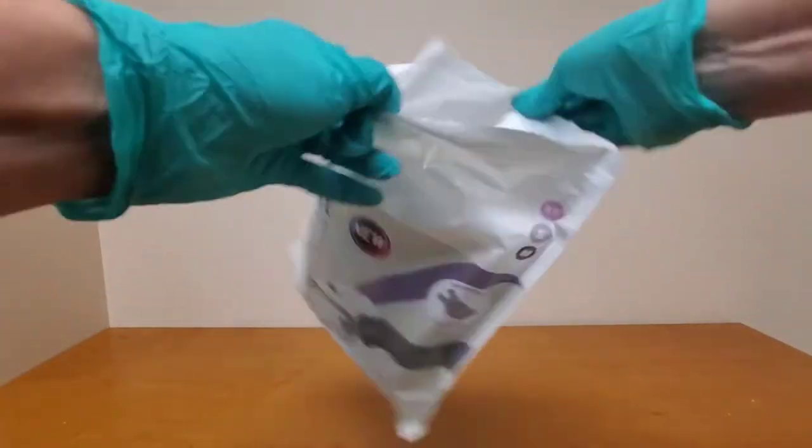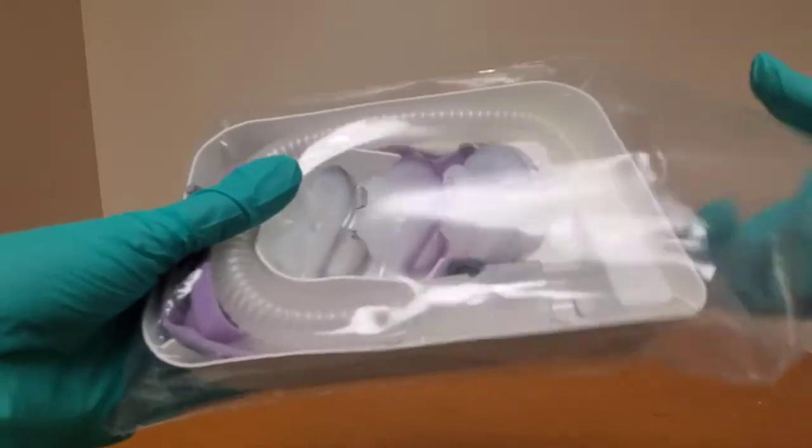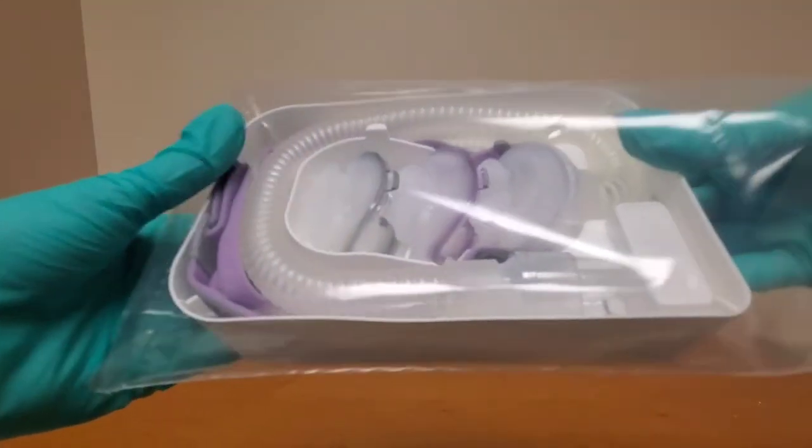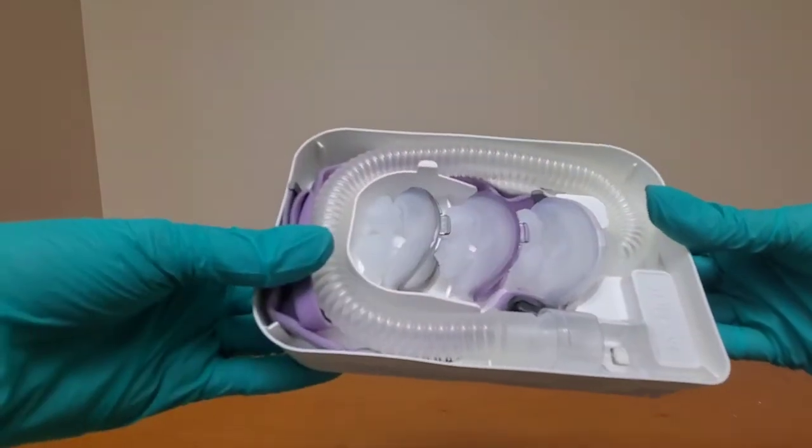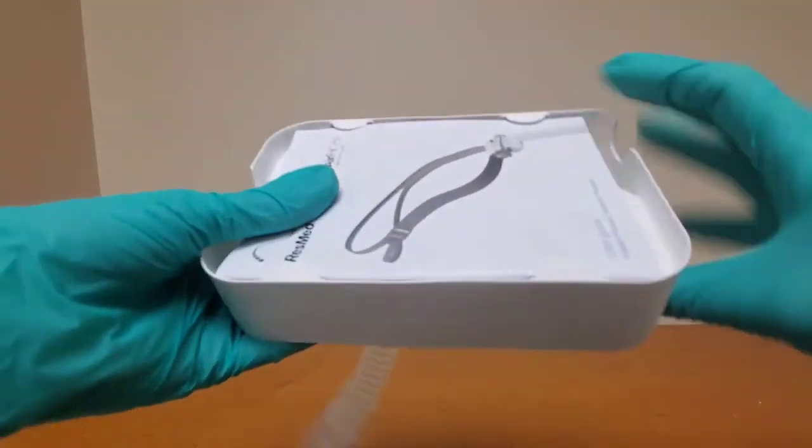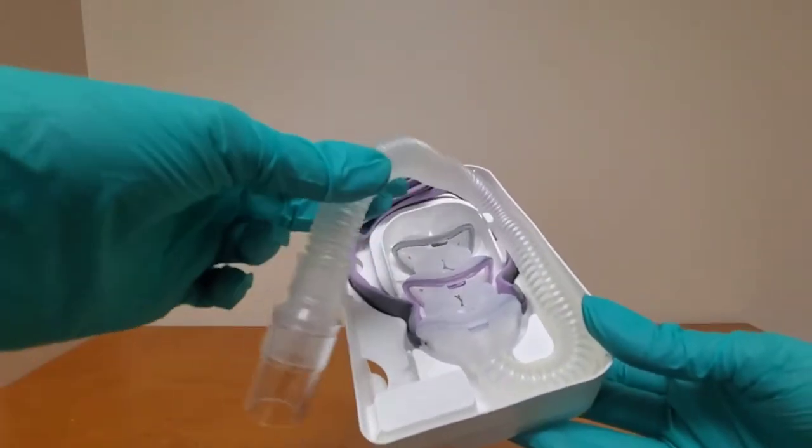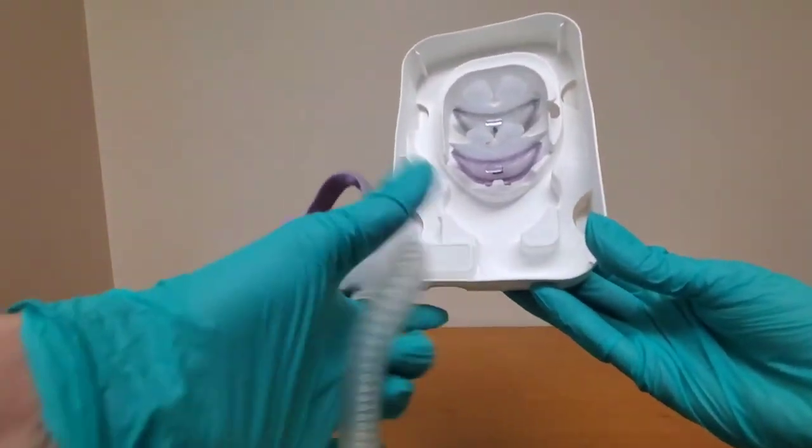This fantastically quiet nasal pillow mask is super flat which is wonderful if you're sleeping on your side, you can't even hardly feel it. The elastic headgear stretches on and off and typically tightens every time you wash it so I never felt like it needed an adjustment but it has one now.